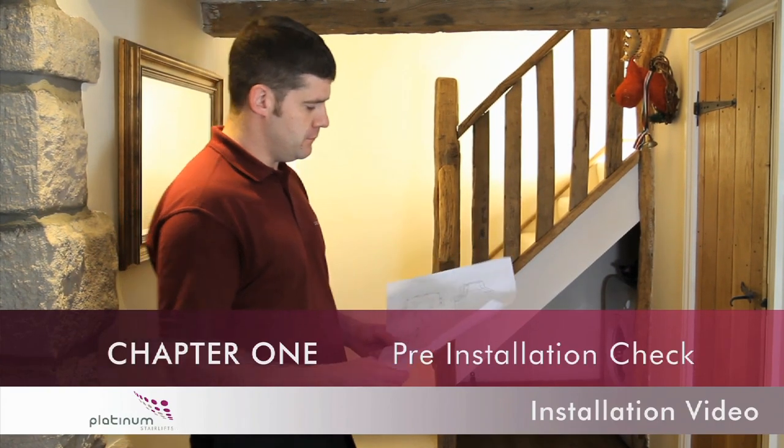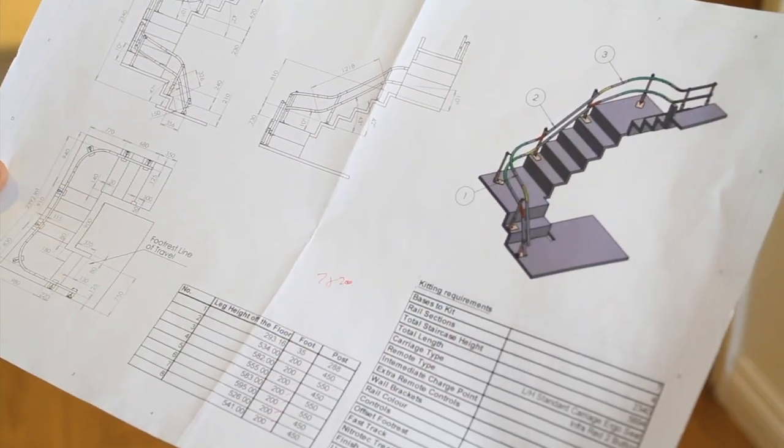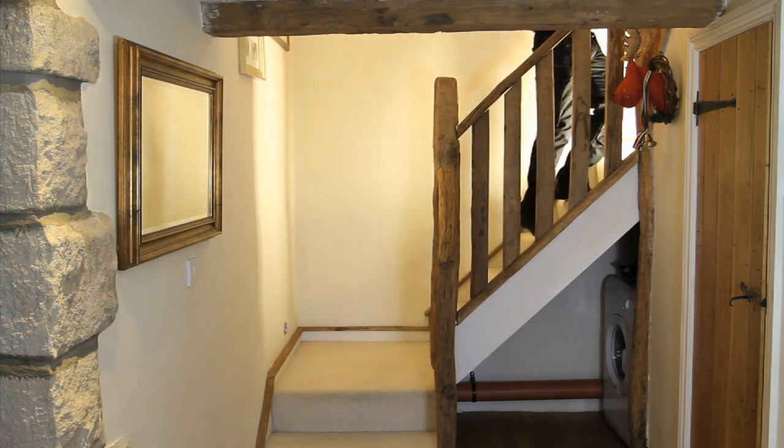Chapter 1: Pre-Installation Check. Upon arrival on site to begin the installation of the stairlift, fully check and compare the staircase to the drawing provided in your installation kit.